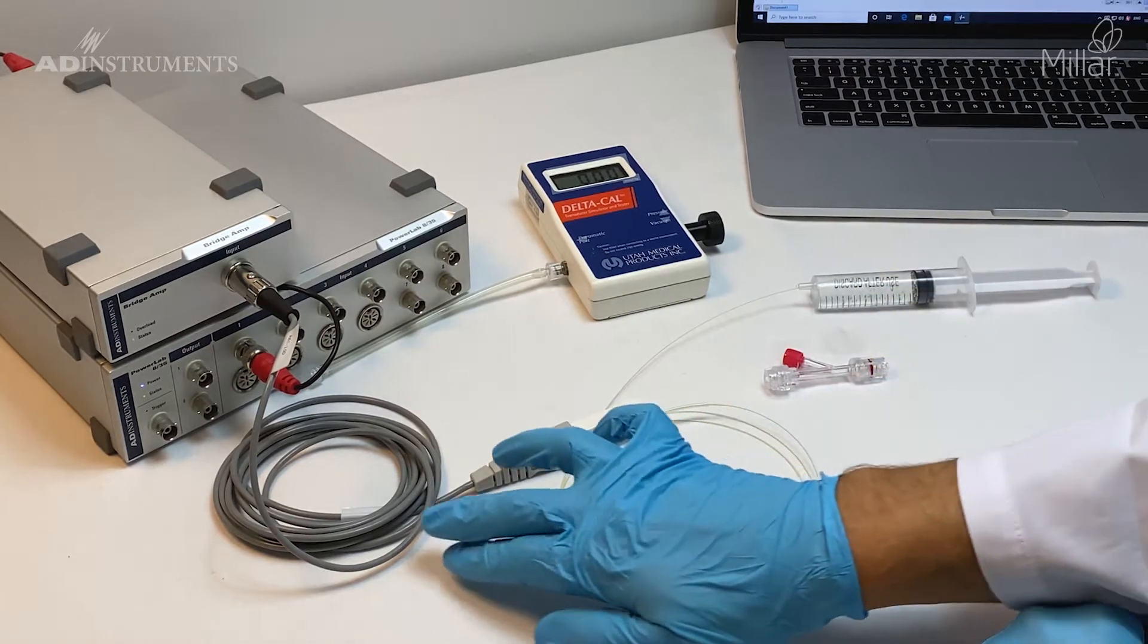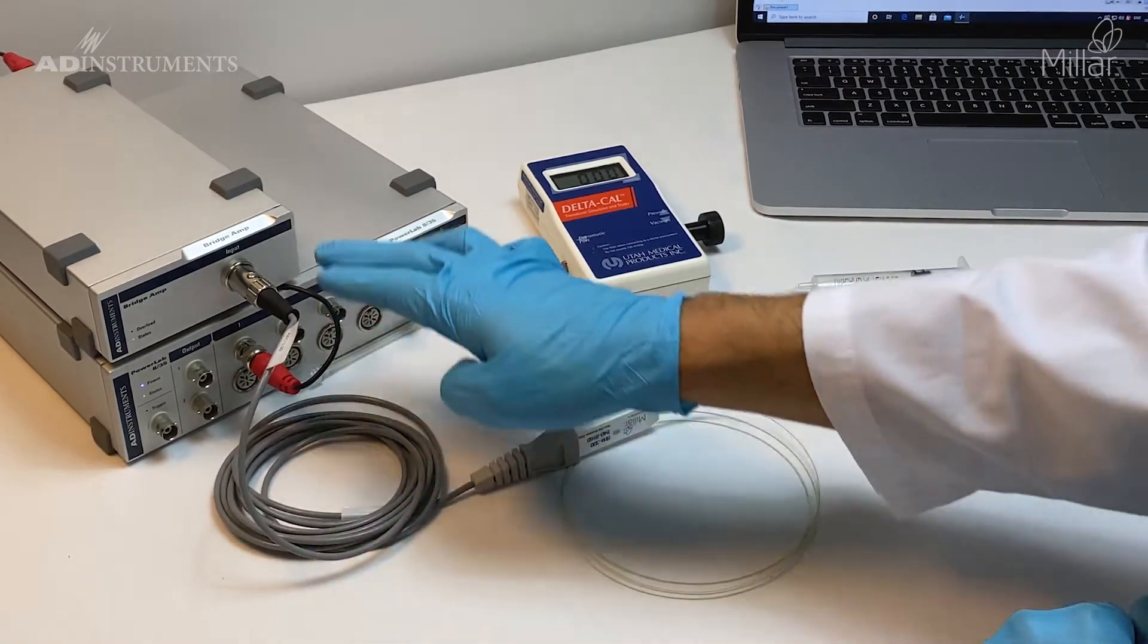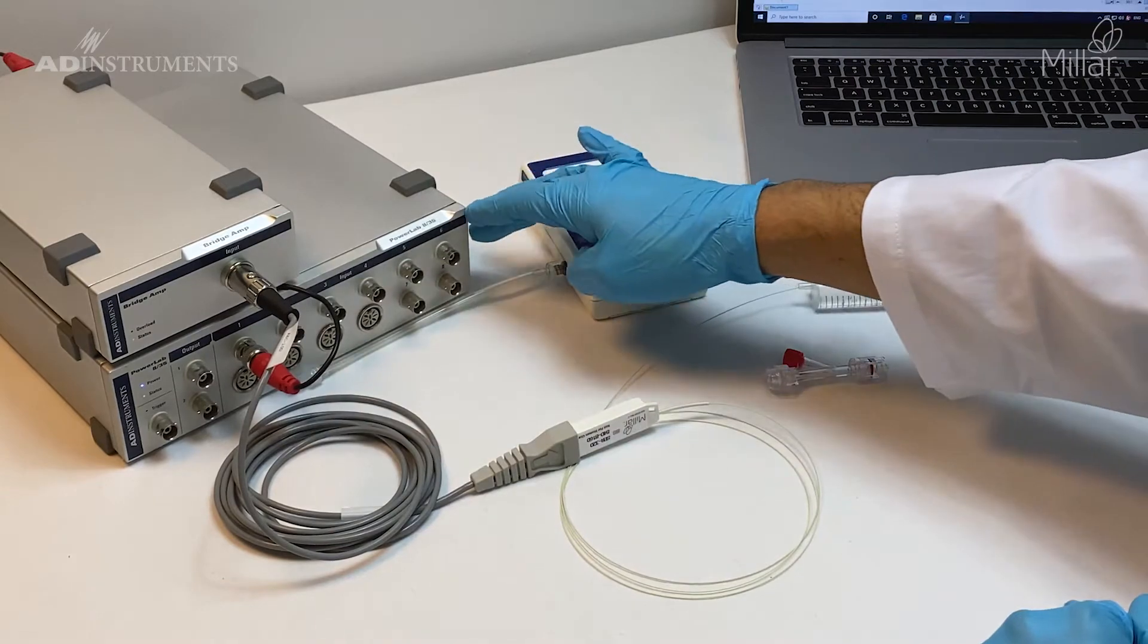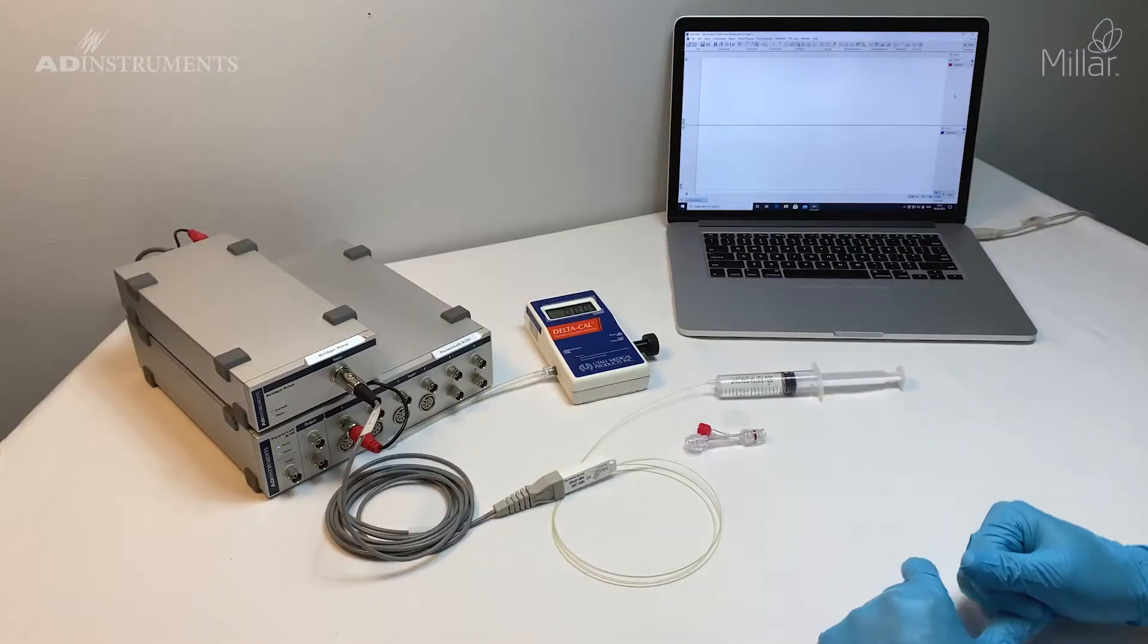The catheter is connected to the AEC-10D interface cable to a bridge amp, and the bridge amp is connected to a PowerLab running LabChart software.